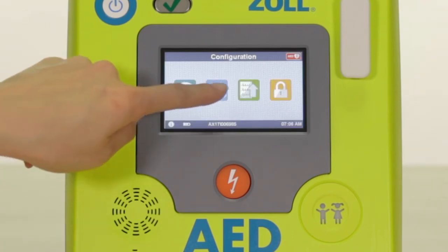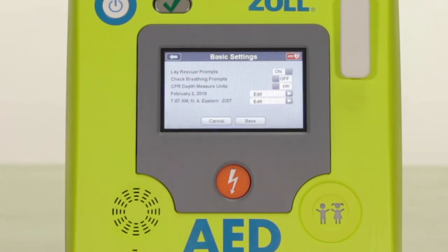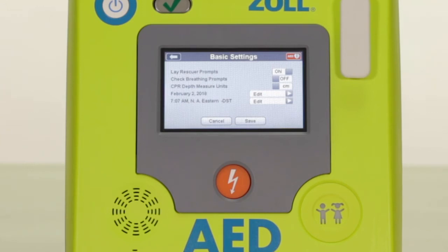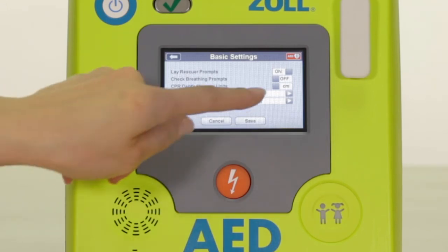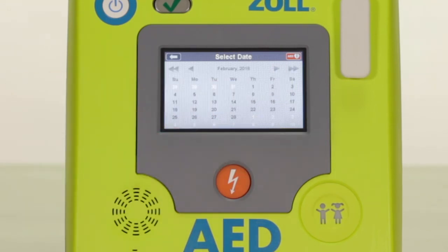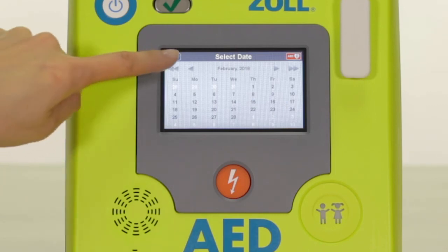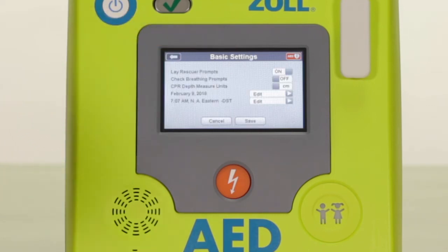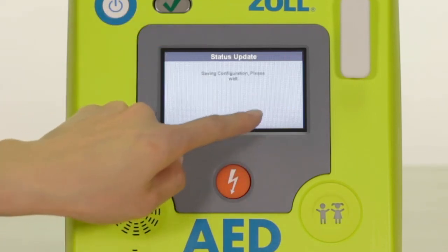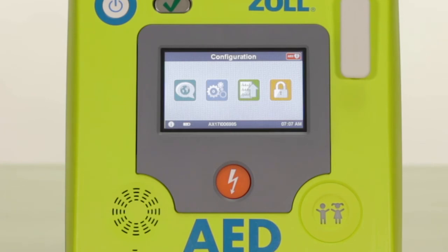The blue gear option allows you to make basic changes to the prompts, measurement units, and date and time. Simply select the item you wish to change by touching the item on the screen, choose your preference from the menu, and save changes prior to exiting the screen.